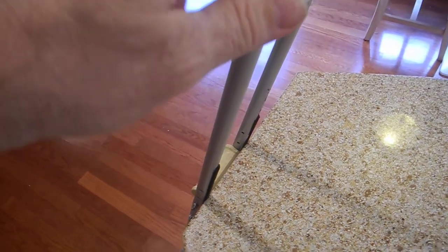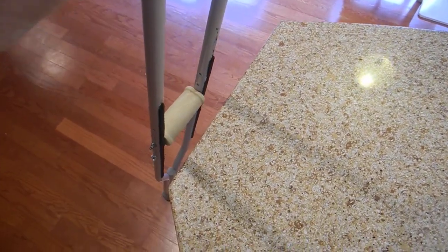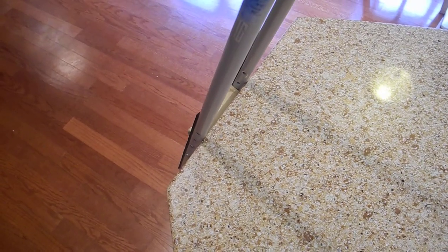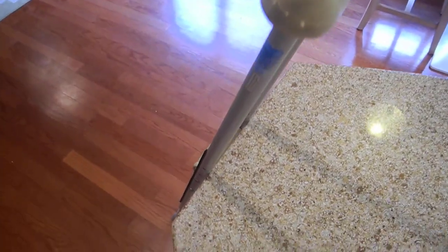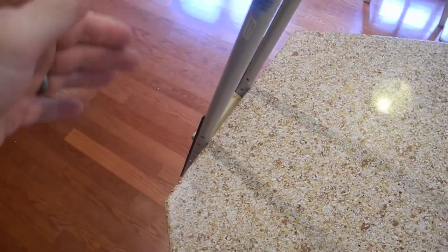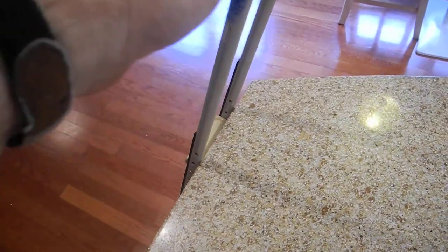This is MH4 Designs. I just want to give you a tip: if your kids are on crutches, or if you're on crutches for a long time, when you put them up on the countertop or try to do something, they're always going to slide because they're aluminum. This happens in the bathroom, anywhere — you just lean them against an edge and they're going to slide and fall.